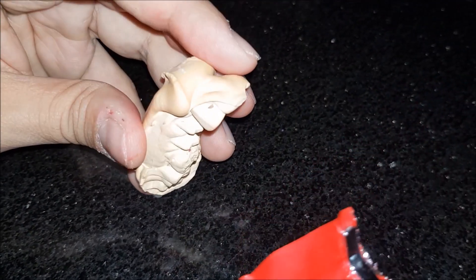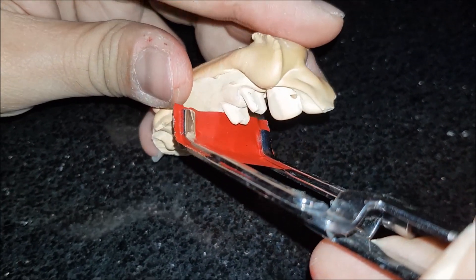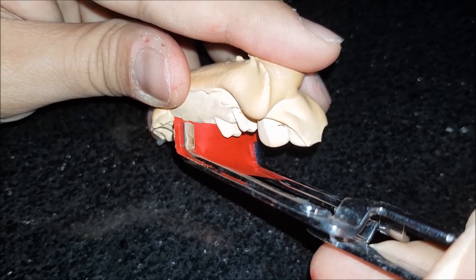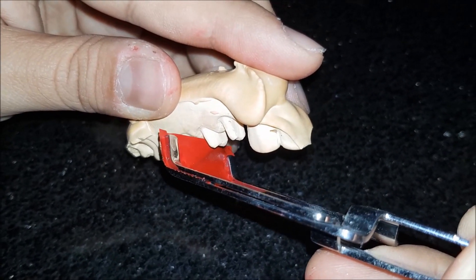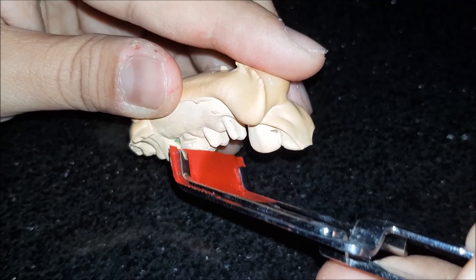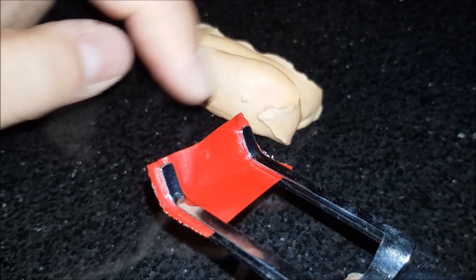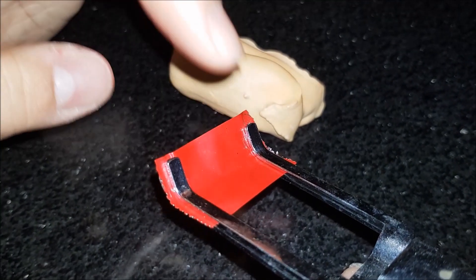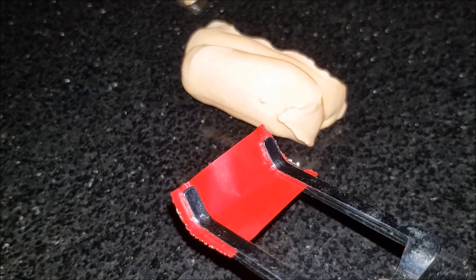Just say for example this is your patient — you hold it in this position towards the distal of the tooth that you wish to check the proximal contact for, and simply place the crown. Instead of moving towards the side, in this situation you will pull in a downward direction. When you do that, the color-coded side will leave a mark where the proximal portion of your tooth contacts the adjacent natural tooth.